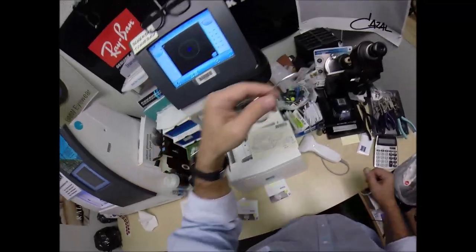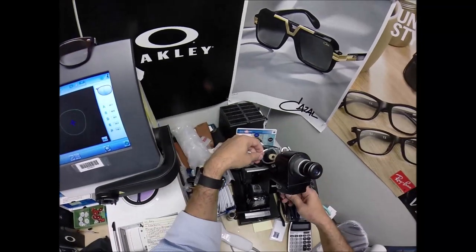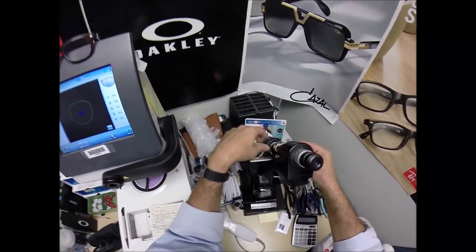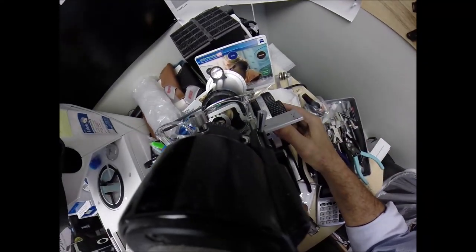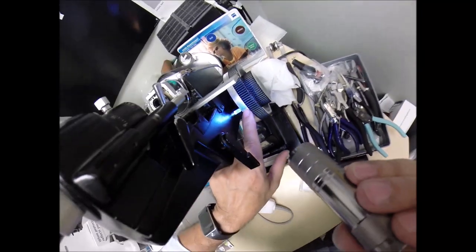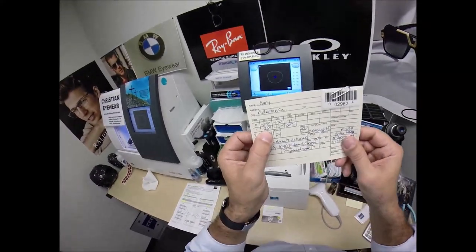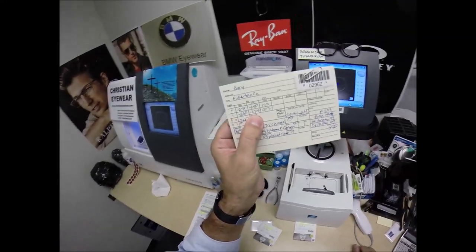If you live in Norway and you leave your glasses in your car overnight in the wintertime, the plastic can become brittle. I'm going to spin the fine tune knob to five, which corresponds to the axis of your astigmatism of your left eye. I'm getting minus 250, exactly halfway between two and three. Check your astigmatism correction — the second curve. We're at minus 375, one tick mark away from four, going away from three and towards four. Because again, you loan someone $2.50, then another dollar and a quarter, you would end up with 375.